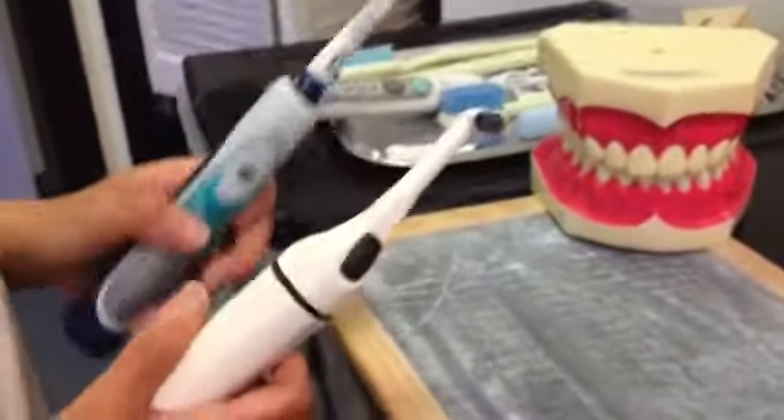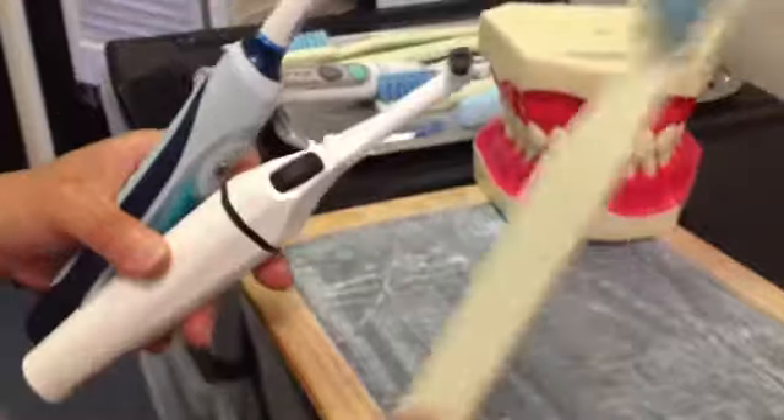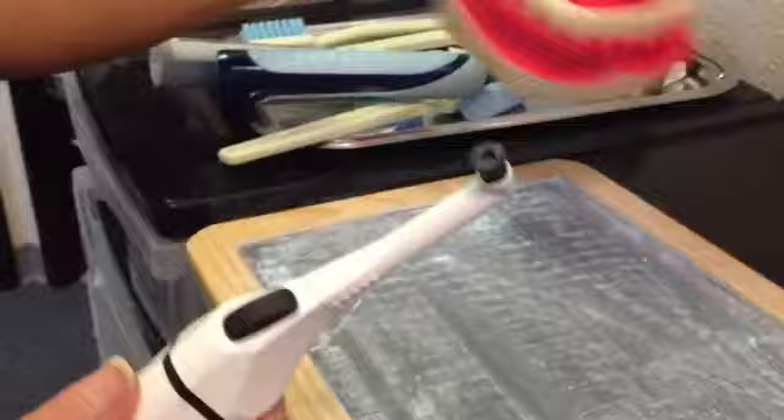So there, what it is — you have microfilaments that are like 10 times skinnier than this and the regular brush. And so you can get into the crevices pretty well.